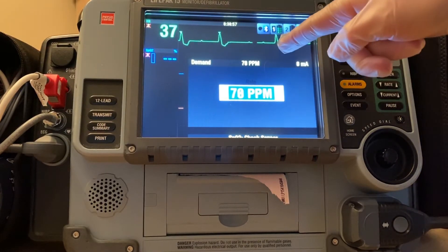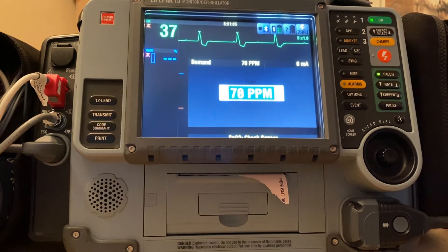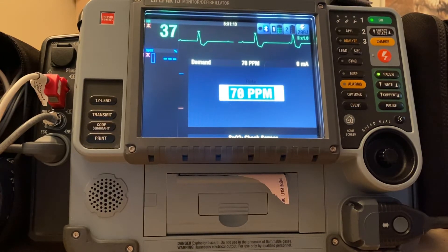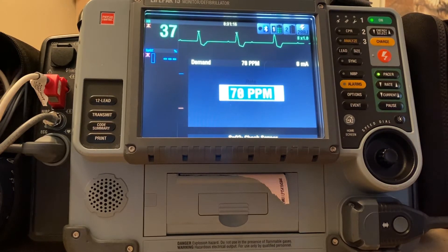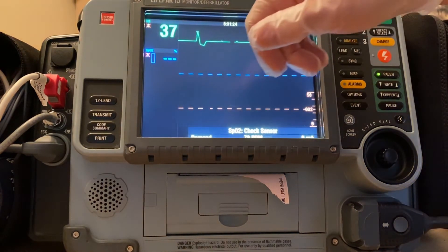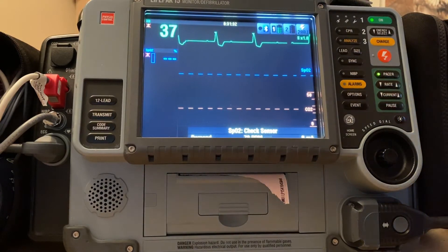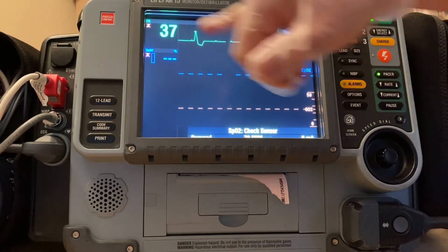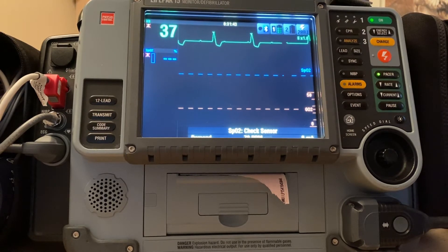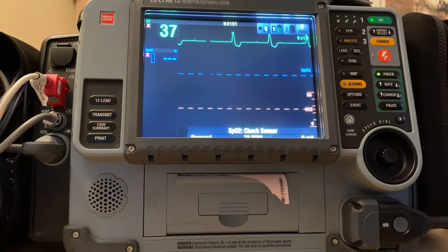What can be confusing between this and cardioversion is that the machine is also flagging QRS complexes here — it flags the R wave, or tries to, both when you're doing synchronized cardioversion or pacing. In synchronized cardioversion, it's basically saying 'I'm going to deliver the energy here — this looks like an R wave.' In pacing, what it's telling you is 'I recognize this as the patient's normal intrinsic beat and I will not pace over that.' So this is a demand pacer. If we set the pacing rate to 70 and the patient's intrinsic rate is 40, the pacer is going to try and slip in about 30 extra beats per minute.